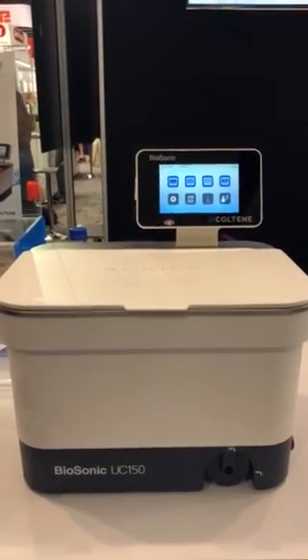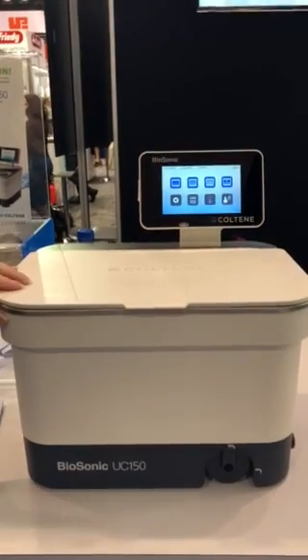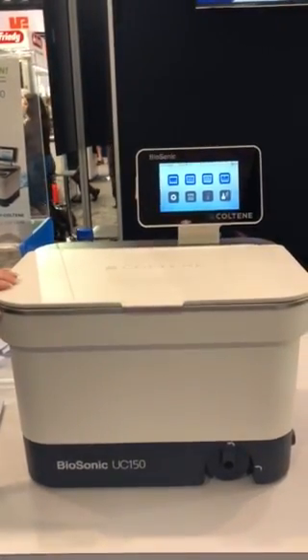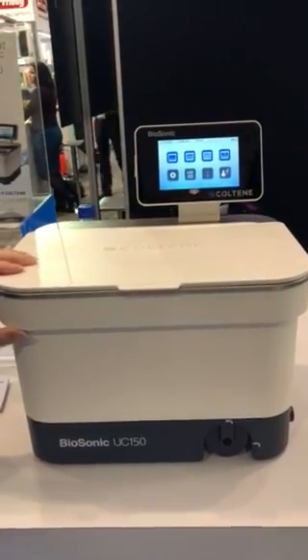This is a brand new unit, just released as of today. There is a special rebate for anyone purchasing at Chicago Midwinter, and they're on sale now.